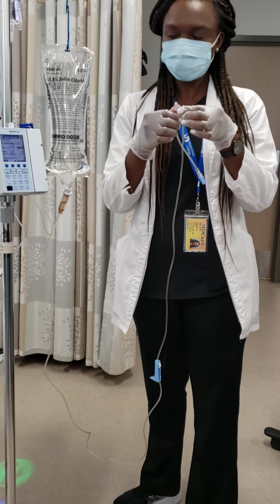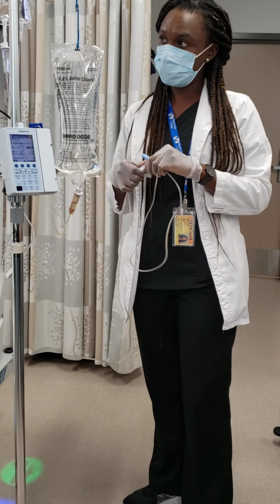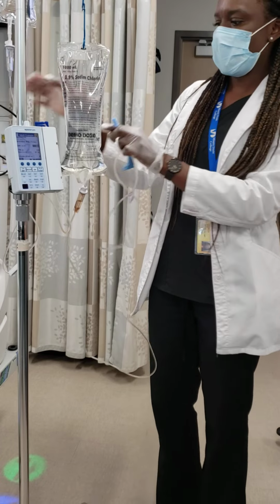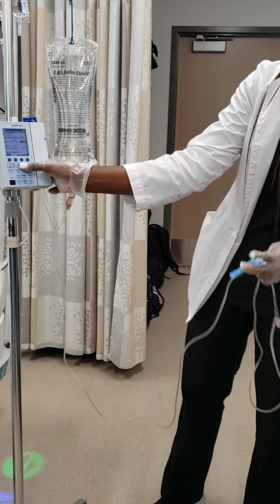Professor, when you have the primary and secondary, do they both go at the same time, or does one go after the other? Right. In secondary, I'll show you. Watch. You will see which one will be dripping. So if I'm going to press OK, I'm ready to start.